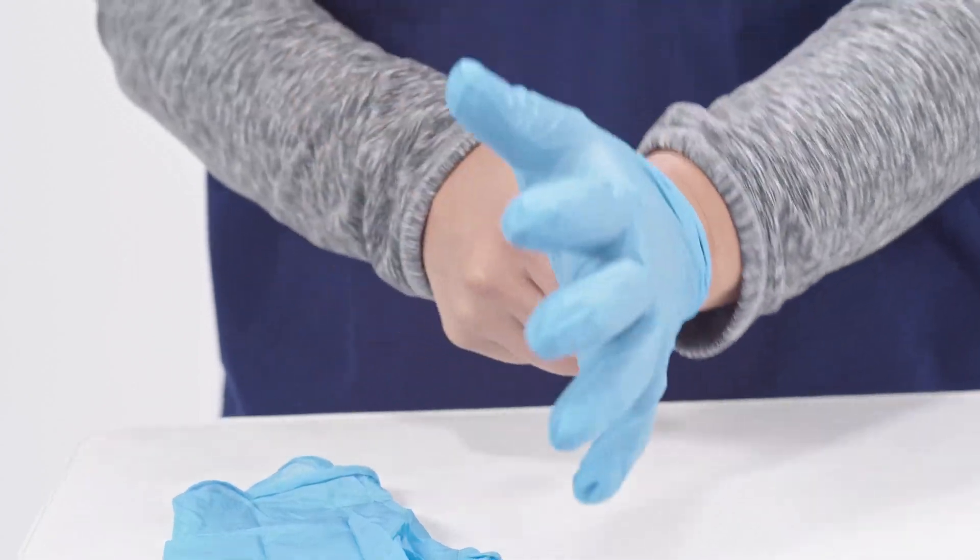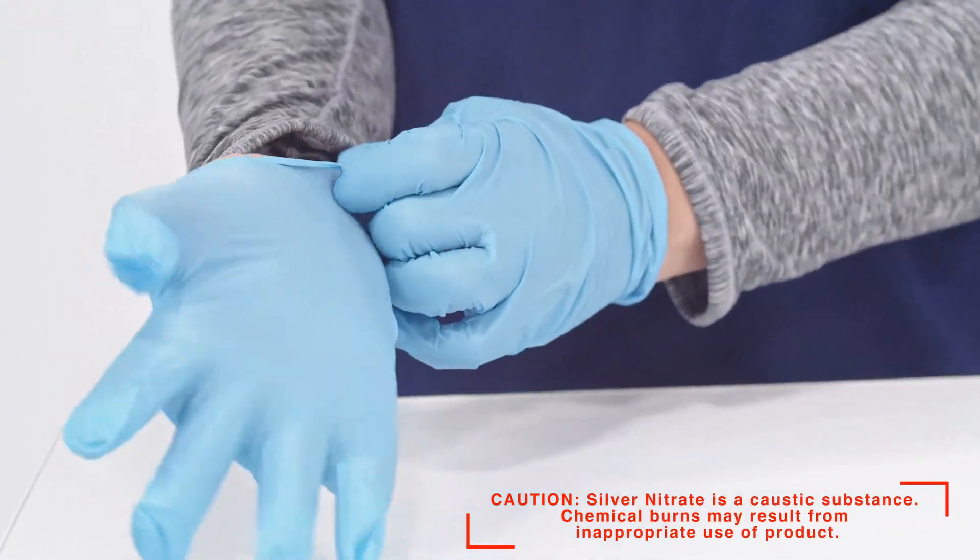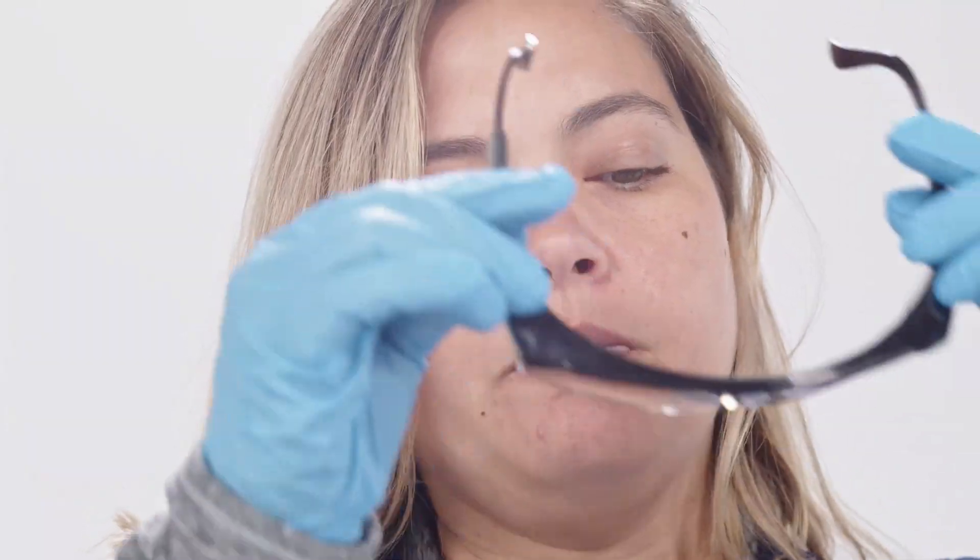When handling the silver nitrate applicators, remember to use protective examination gloves in order to prevent unnecessary or accidental skin contact. Use eye protection such as safety glasses to prevent accidental contact.